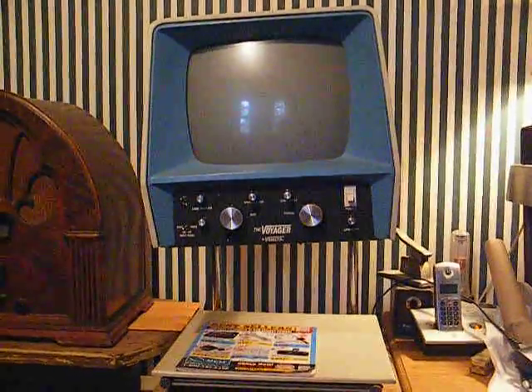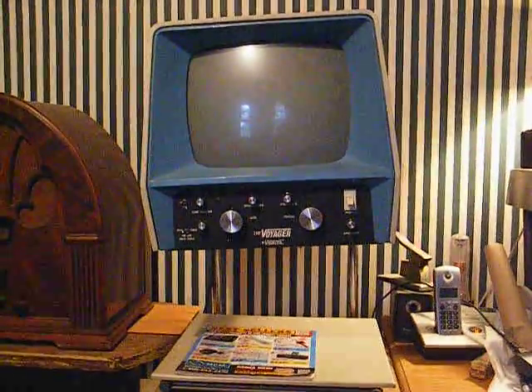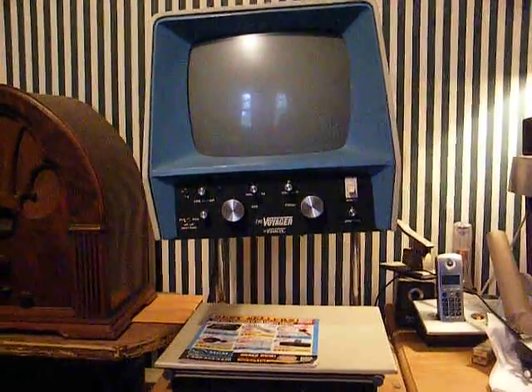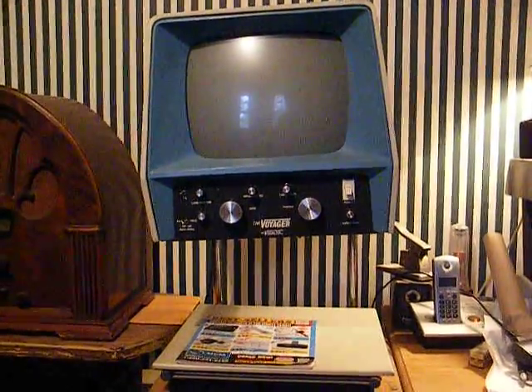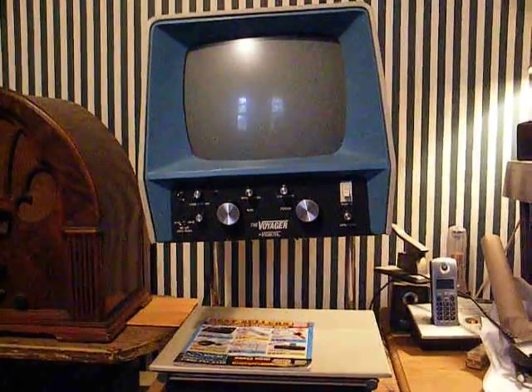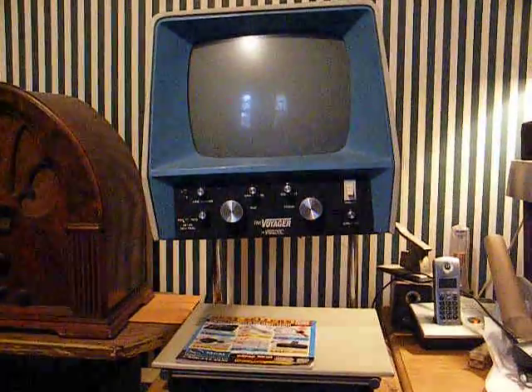But it was very difficult for me to see normal print since I'm legally blind, and the standard magnifiers at the school did absolutely no good. My mother saw a newspaper article about a boy that had a similar machine, and she did some looking into it.